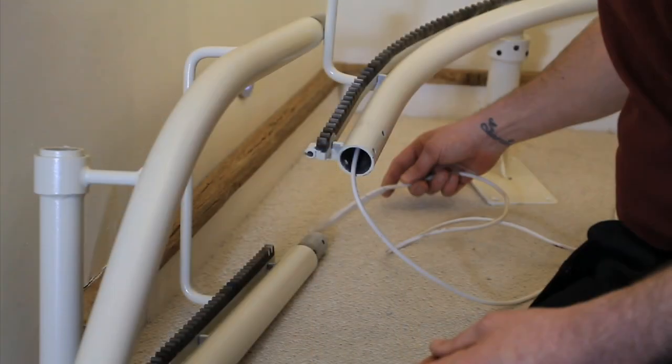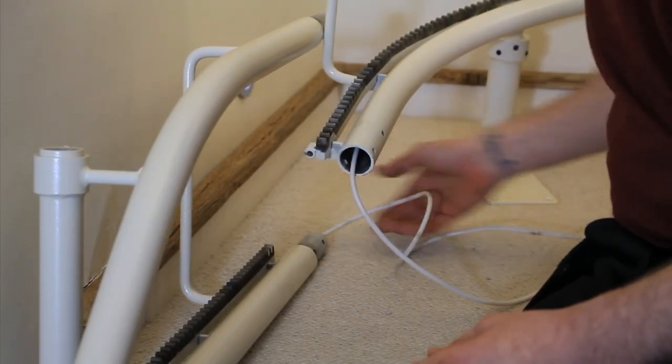Welcome to the Platinum Curve Stairlift Installation Video. This video has been produced by Platinum Stairlifts to help show you how to install your stairlift correctly.